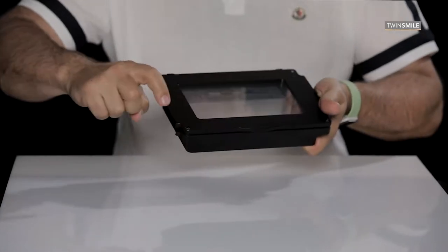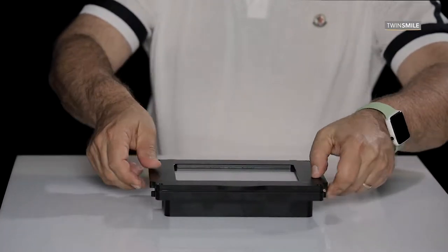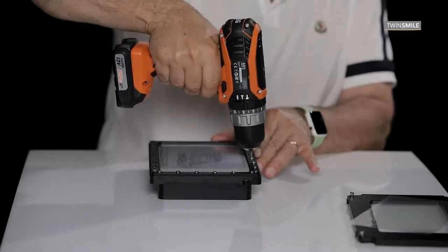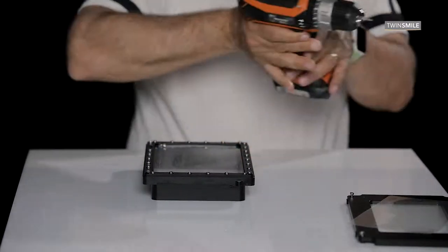To do this, remove any resin in the tank and remove the four screws underneath the tank to separate the first frame. After separating the first frame, you will see additional screws that have to be removed.